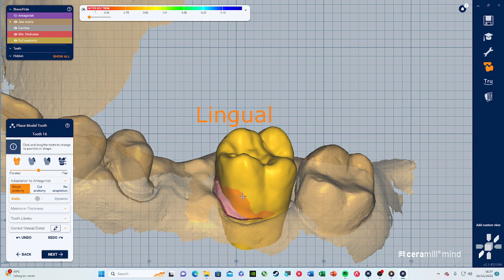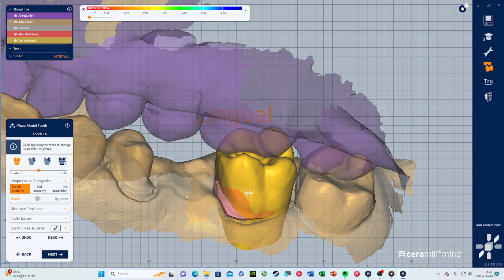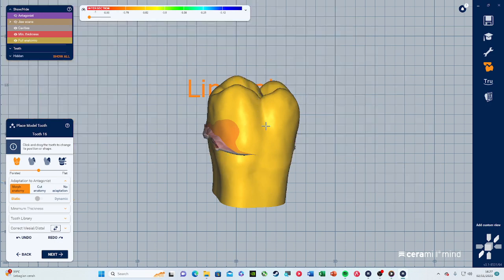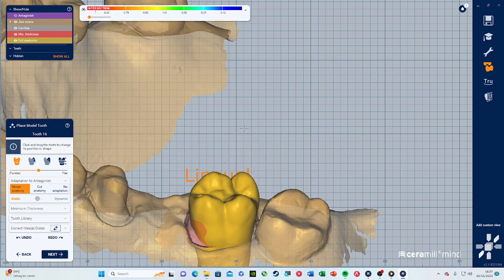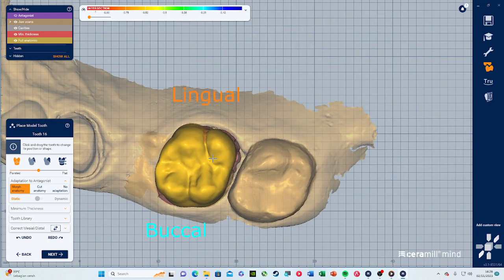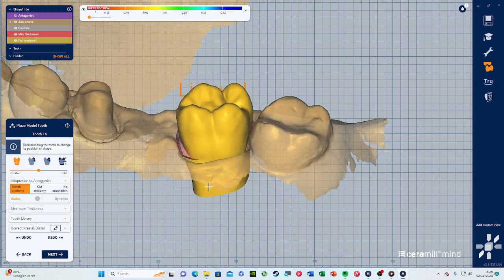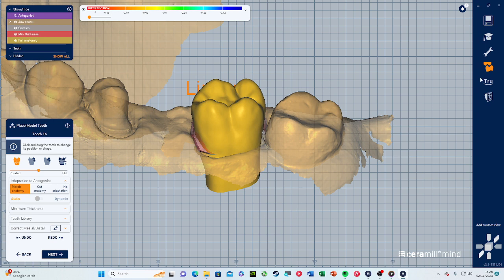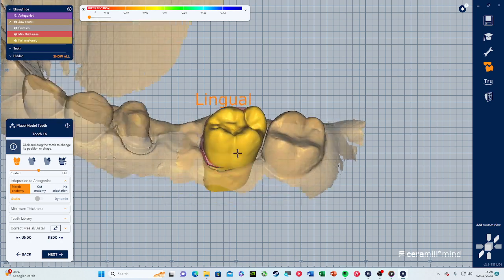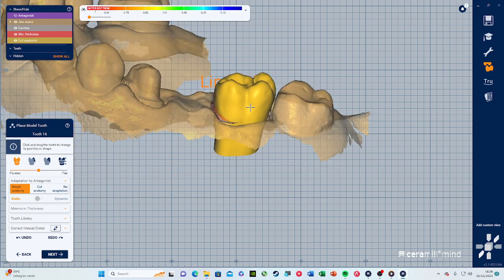Press A to show your antagonist — to check if you're actually hitting the antagonist tooth or not. Press S to get rid of the surroundings. Let me get rid of the antagonist just for a second — it does take time. Compared to tooth number 17, the crown is not oriented correctly yet. Let's orient it properly. That's much better.